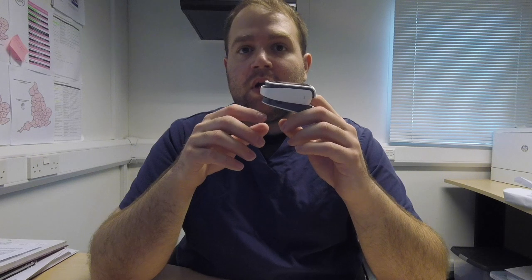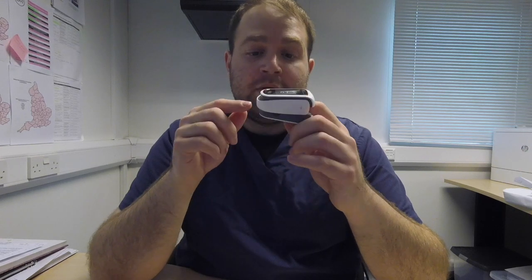It sits pretty comfortably on my finger. I've done two very long tests — six hours the first time and seven hours the second time of continuous measurement. It never squeezed my finger and always felt very comfortable. It also has a little movement on the back so that it doesn't squeeze your finger, or in our case, the animal's tongues.